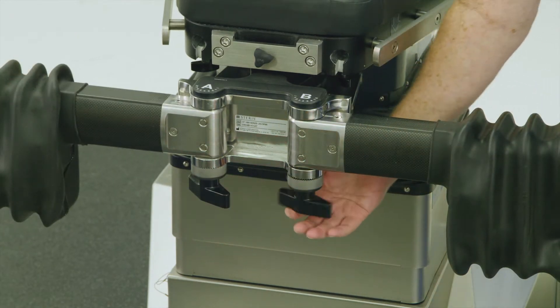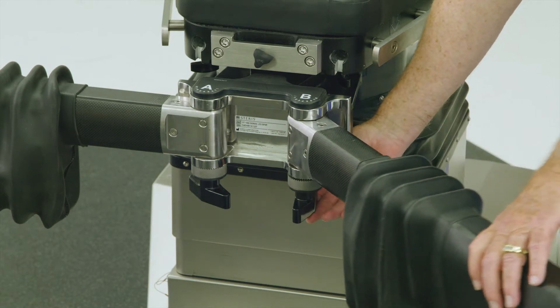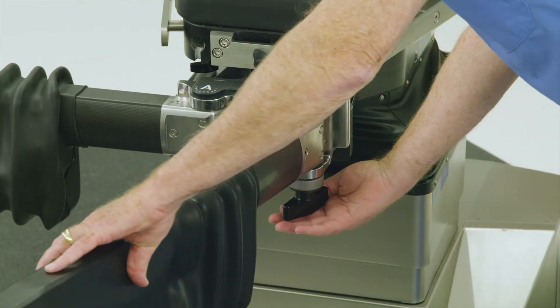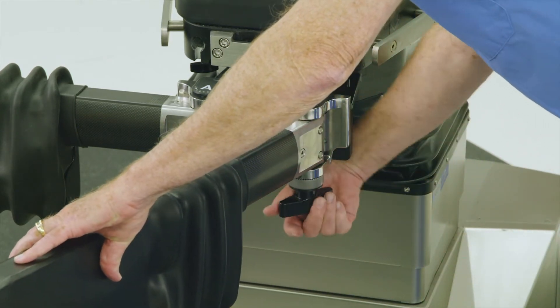Next, loosen the knob below the B rosette and set the B joint to position 3, then re-lock the B rosette handle.